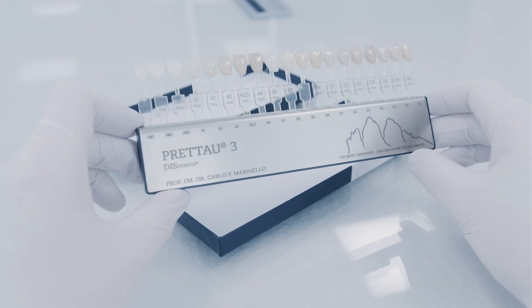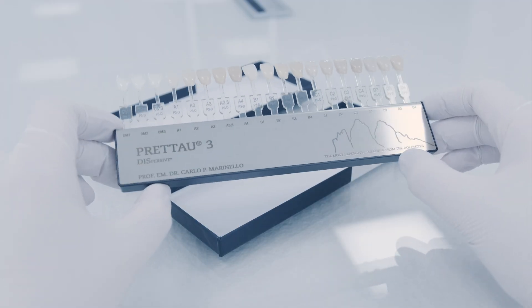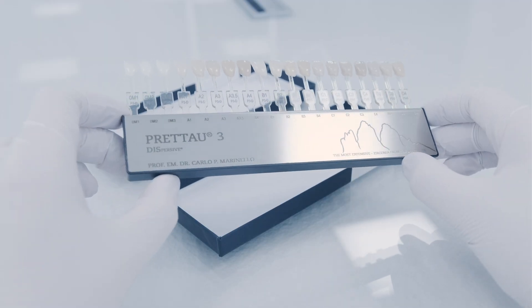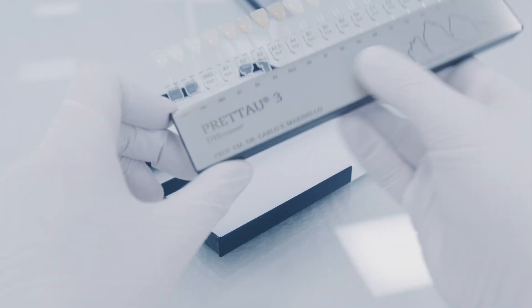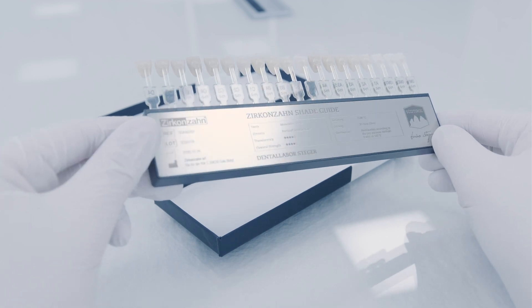On request, the front side of the shade guide can be personalized with the name of the dental practice and the back with the name of the dental laboratory.